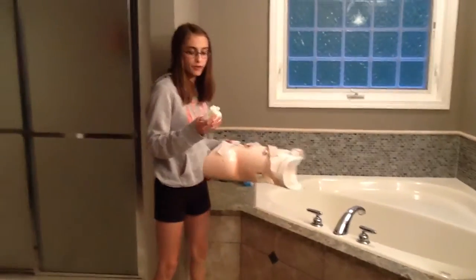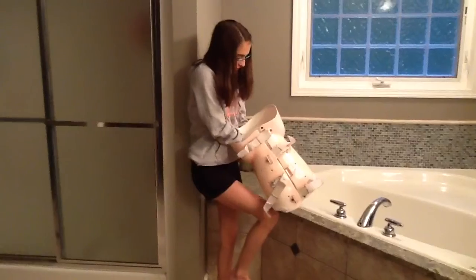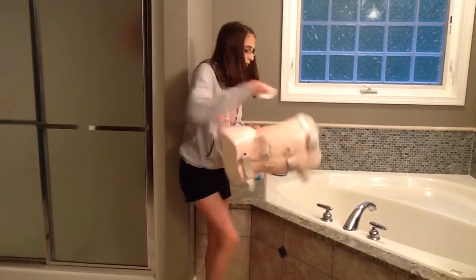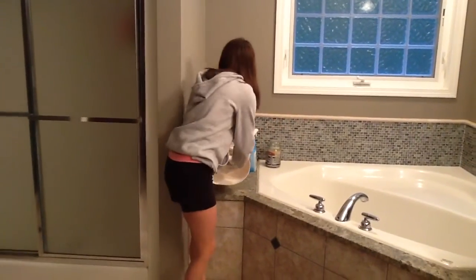Now I'm going to show you guys how to clean a brace. I just wet a paper towel with some rubbing alcohol and I'm just going to rub it around my brace until it's all been rubbed with the alcohol. I'm going to get in all the creases and everything and up at the top just to make sure it's clean and it doesn't smell. Once I'm done, I'm just going to give it about 15 minutes until I put it back on so that it's all dry. Definitely do this in a time when your brace is not on so that way it is going to dry.